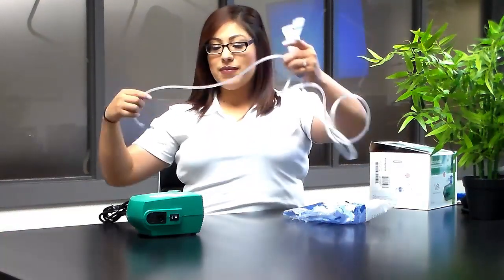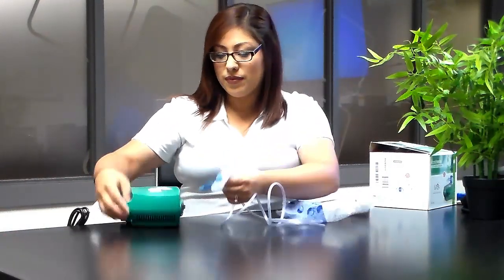Then attach the other side of the tubing to the nebulizer next to the power strip.